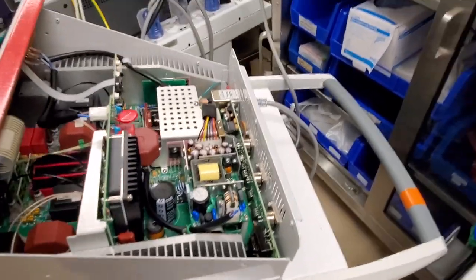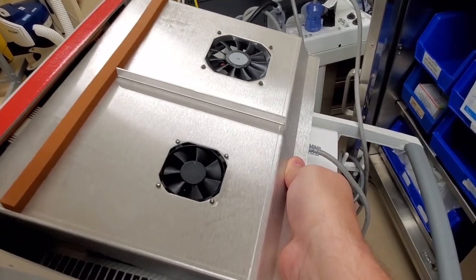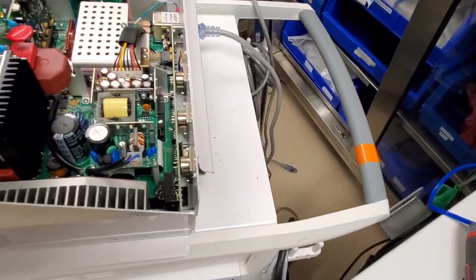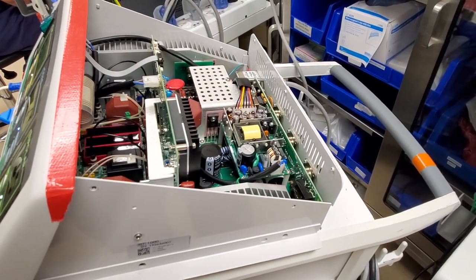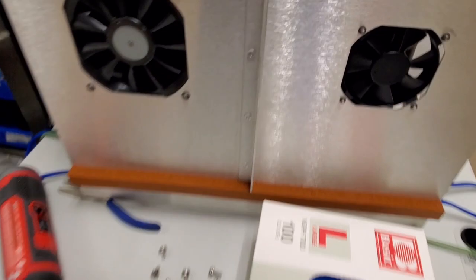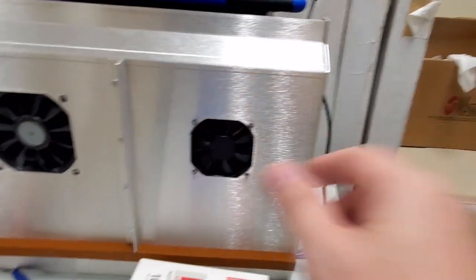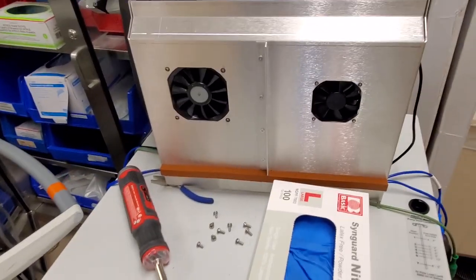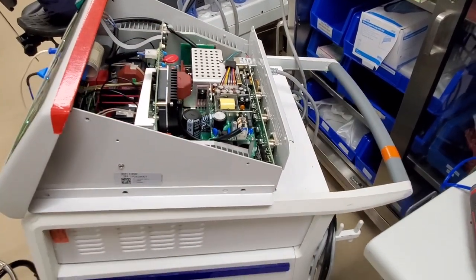I also want to show you guys something I was not familiar with — on the inside of this guy is a metal pan with two cooling fans underneath the lid. You can see the lid right there. So that means you're eventually probably going to get some fan whirr, which is the sound they make when the fans get dirty because they're not getting cleaned. These fans are only a couple months old and I can already see a little bit of build up on the blades. So if the fans have the ability to get dirty — which all fans do — they have to get cleaned, and that means we've got to pull five or six screws off the back, open it up just to clean those fans. What a pain in the butt that's going to be.